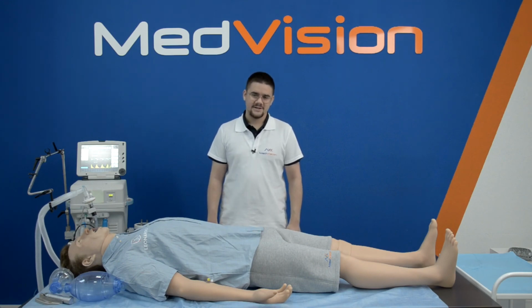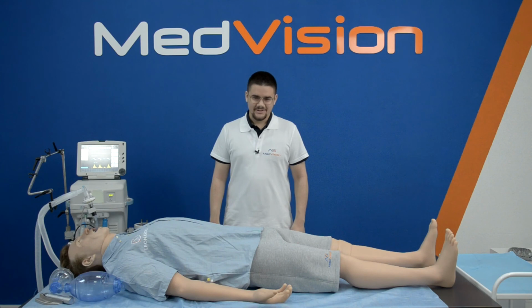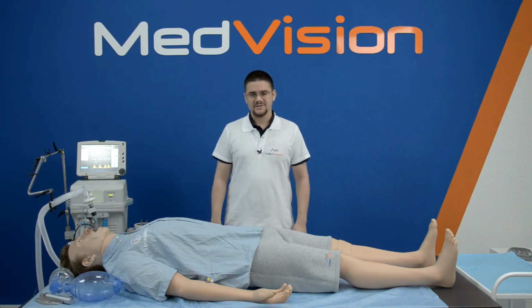This concludes our video about our highly realistic patient simulator, Leonardo.